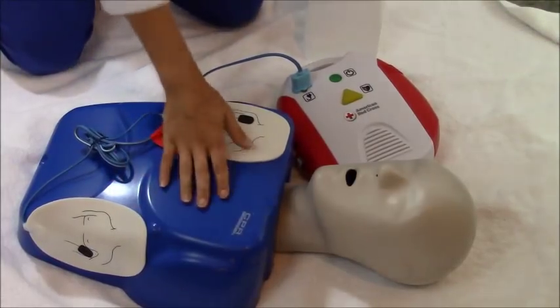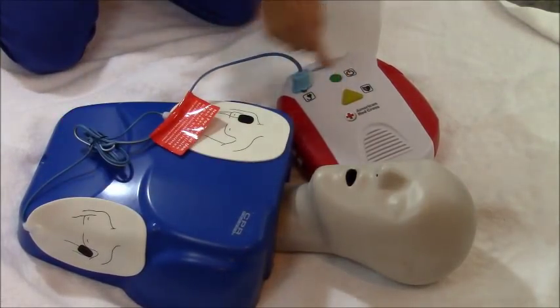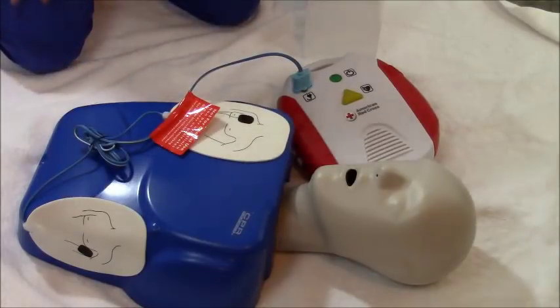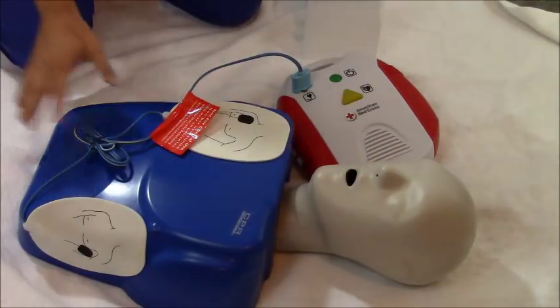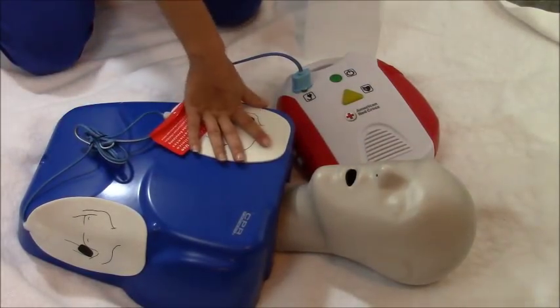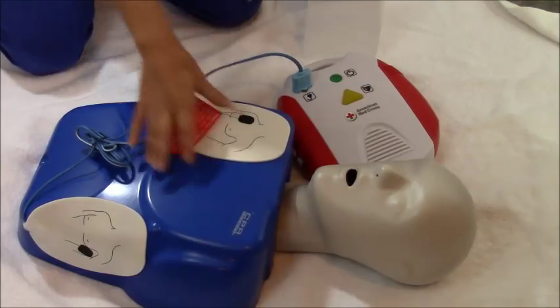And that is how you use an AED on a child or an adult.